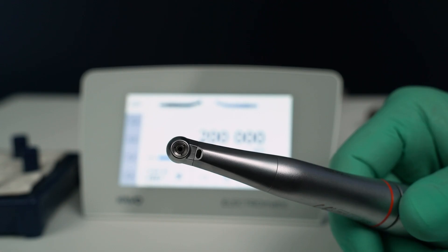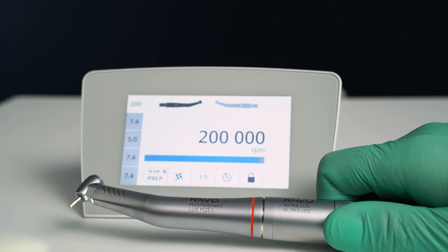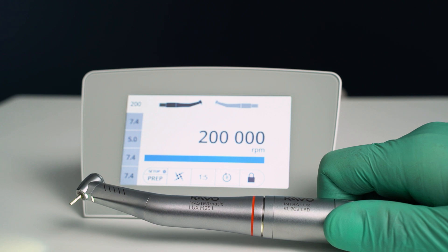Being made out of stainless steel, these hand pieces are incredibly robust. We don't use any nickel or titanium in our hand pieces. The chuck system has been specially crafted with tungsten carbide, which is almost twice as hard the material used in non-KAVO's hand pieces on the market. The Mastermatic M25L and M05L hand pieces connect to the KAVO's KL703 motor supported with KAVO's Electromatic electric systems. With a 1 to 5 transmission ratio, these attachments can reach speeds up to 200,000 RPM.